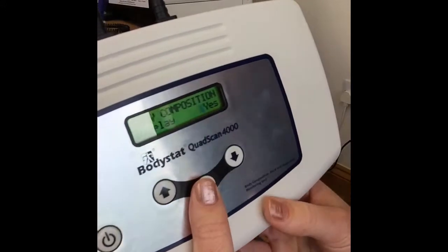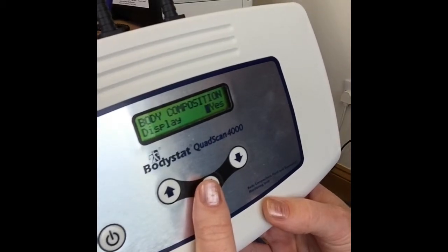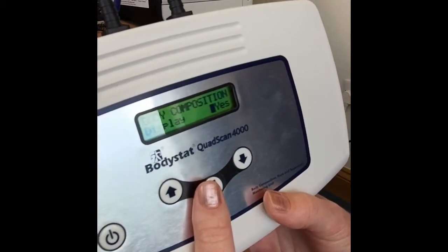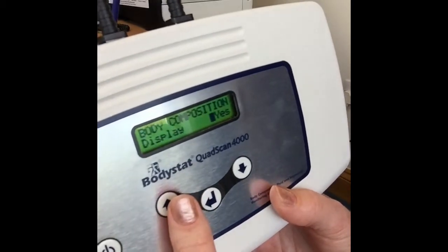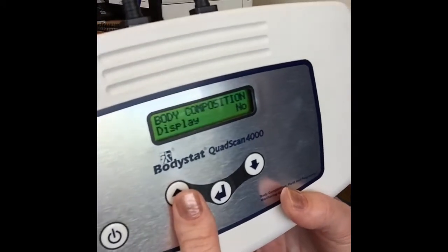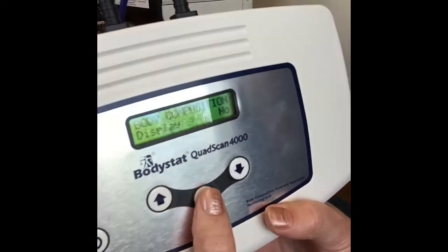You now have the option of keeping the body composition or hydration values showing. For example, if you're only interested in hydration values — intracellular and extracellular water, total body water — and you're not interested in any fat, lean, or metabolic rate values, you can choose to turn off all body composition results. Then it won't ask you to add in your age, gender, and that kind of thing, and you can press enter.